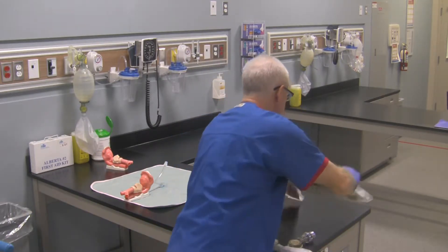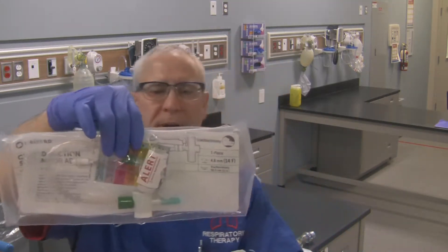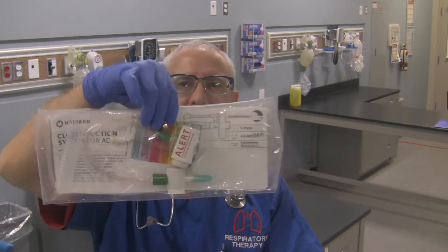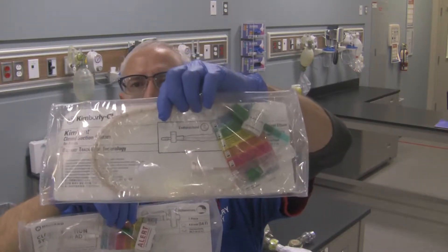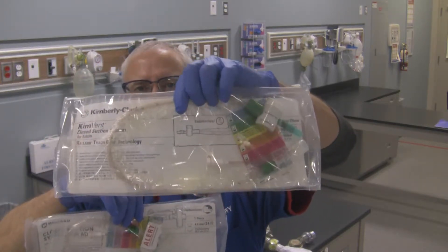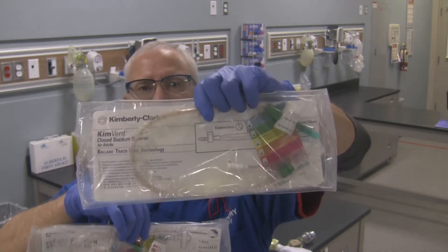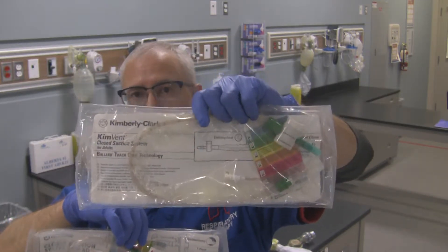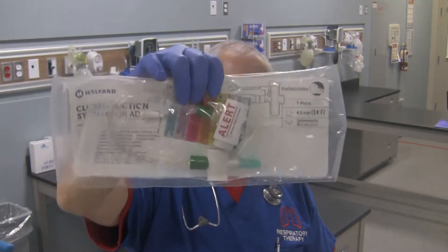We'll need a closed suction system, and there are two different varieties. You're going to find that there are closed suction systems for tracheotomy tubes and closed suction systems for endotracheal tubes. Make sure you've got the right style. Because we're doing an endotracheal tube switchover, this is the one we should be using. If a tracheotomy tube is going in, this is the one you should be using right over here.